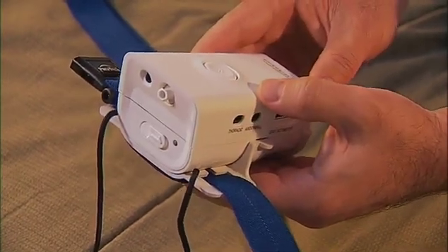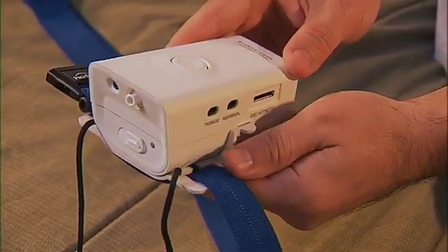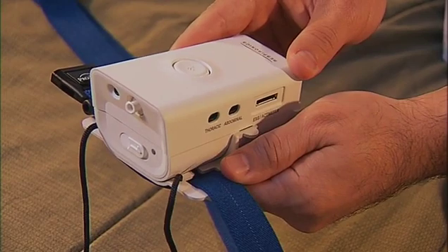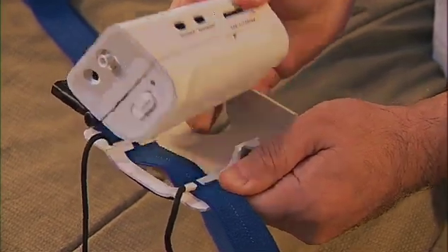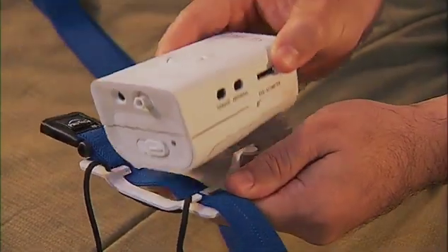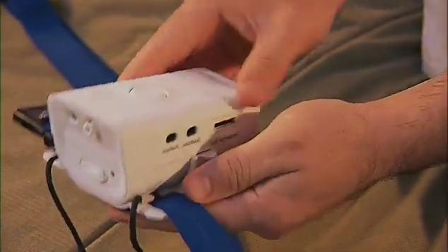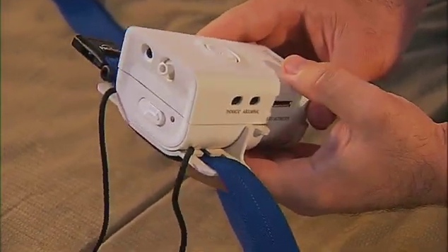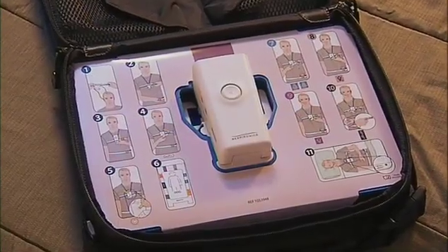Let's first review how to remove the Alice PDX from its holster, should you need to do this during the study. Have the front of the device facing you, and with your opposite hand, place your thumb on the lower corner of the holster where the effort belt is. Gently press down with your thumb until the holster snaps loose and the device can be removed. To place it back in the holder, snap both sides securely in place.